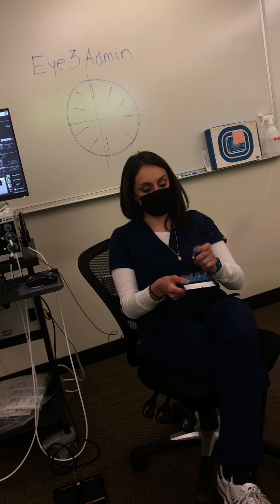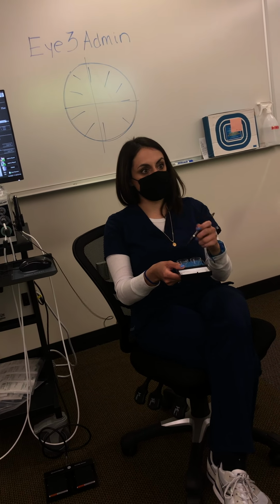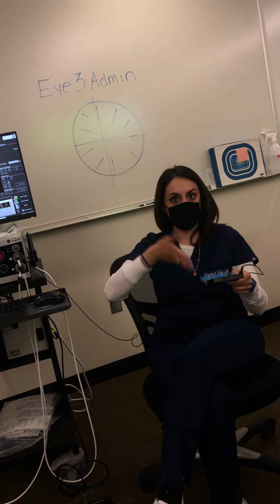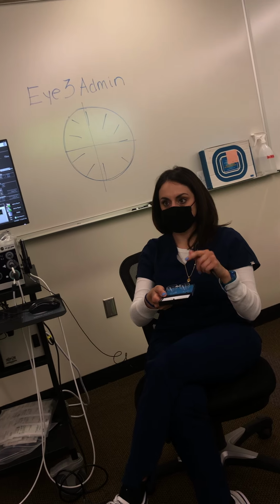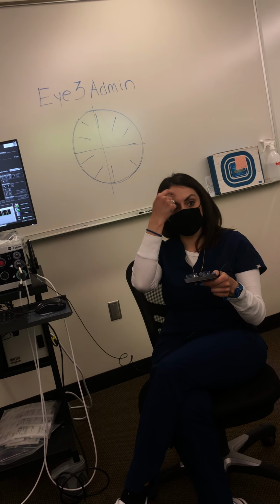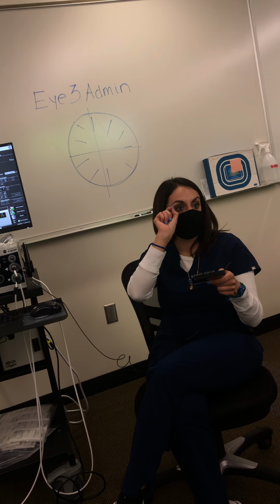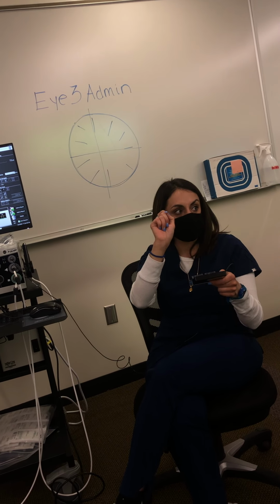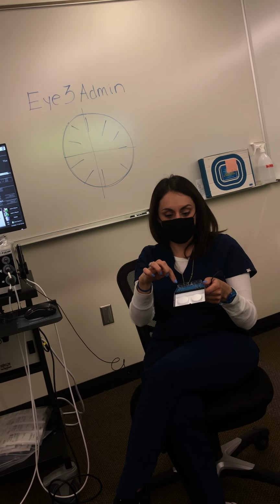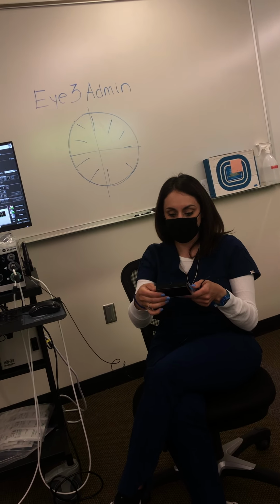And you have control over where you aim the beam, whereas with that little one it's all fixed and central. I do my immersions for really difficult patients with these. You can put it around an eyelid, so with a tarsorrhaphy, if there's just a little bit of pupil sticking out, these are great for that. And there's an adult and a pediatric one too.